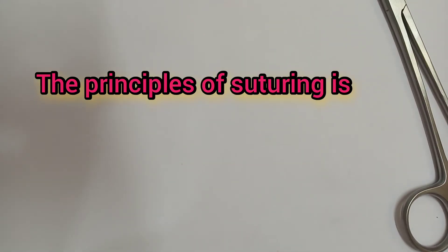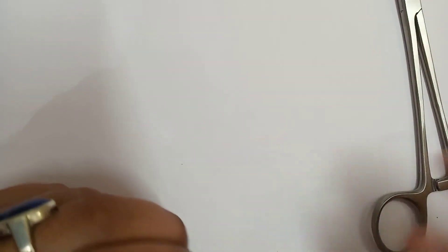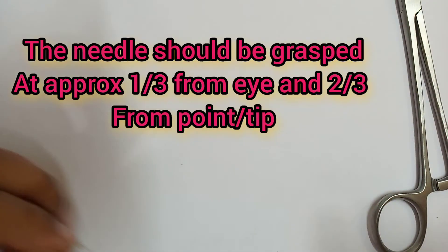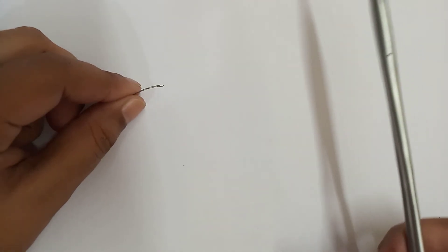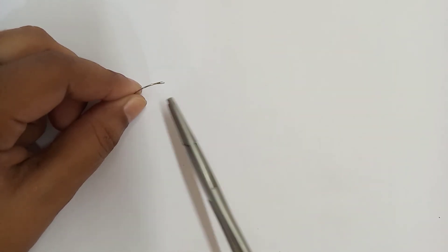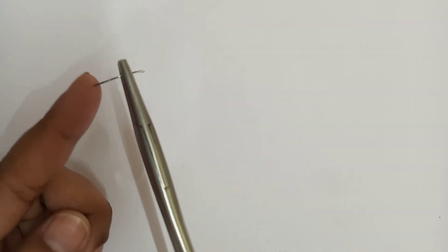The principle of suturing is that the needle should be grasped at approximately one third from the eye and two thirds from the point. Here is the eye, and this is approximately one third distance from the eye — so two thirds distance from the tip and one third distance from the eye.